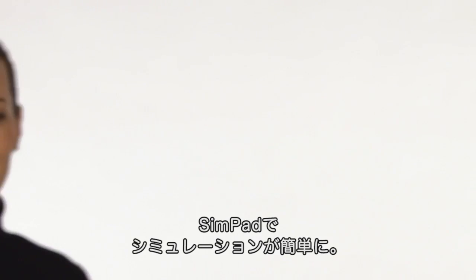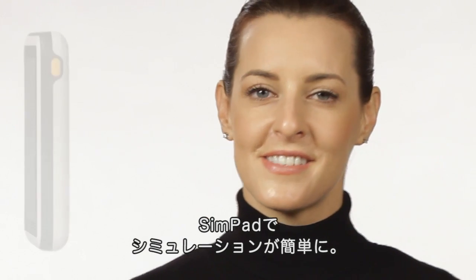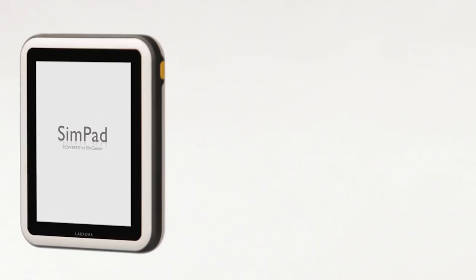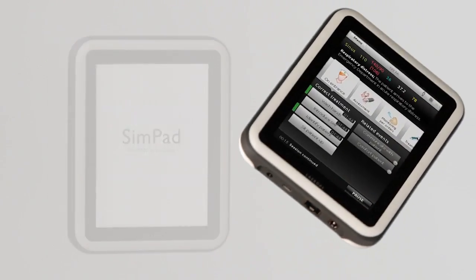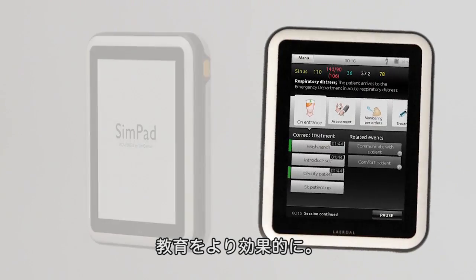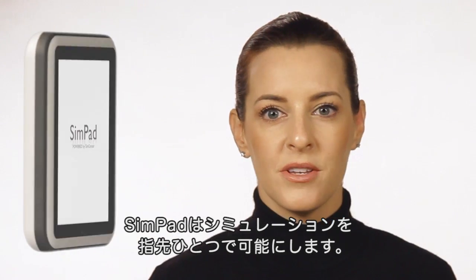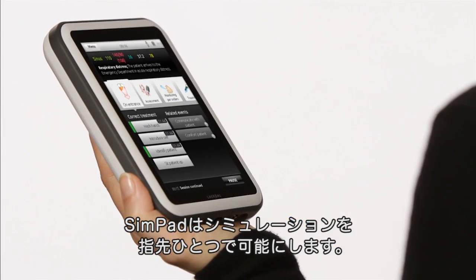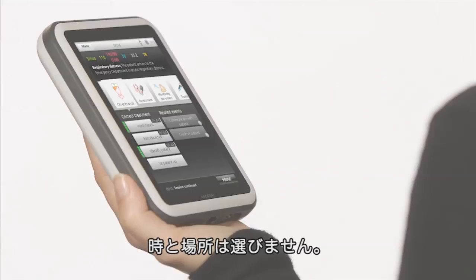Simulation just got easier. Meet SimPad. Get ready for a phenomenal teaching experience. SimPad is a tool that makes simulation available at your fingertip when and where you need it.